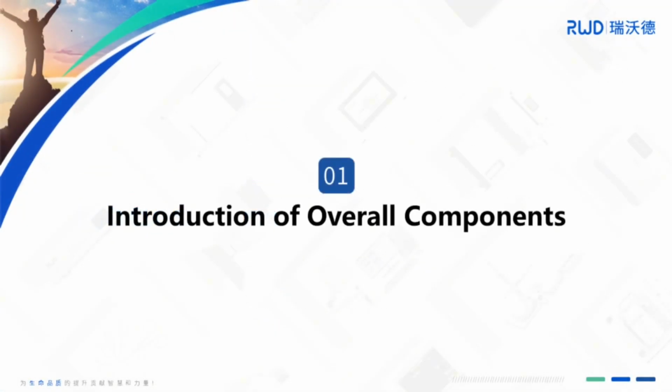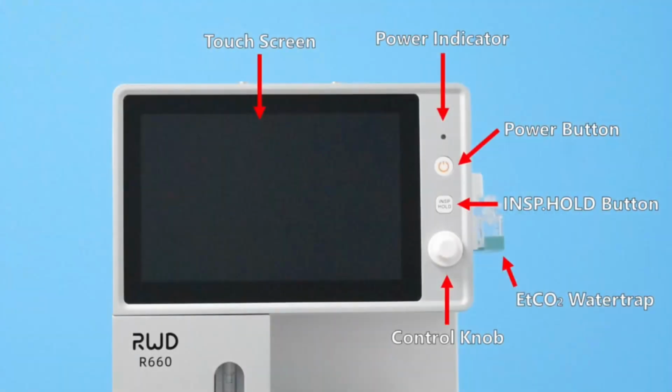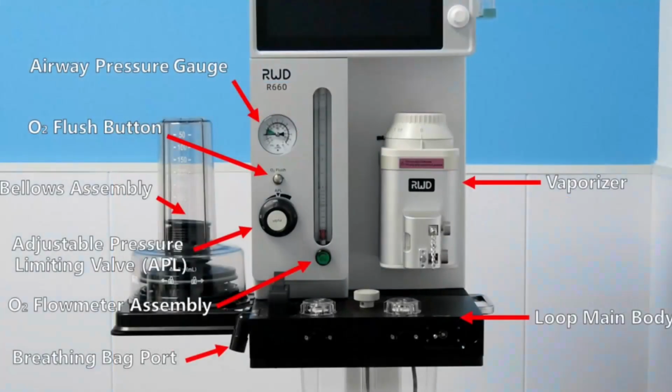Introduction of overall components. We are now showing the names of each component. Please check the screen to match them accordingly.